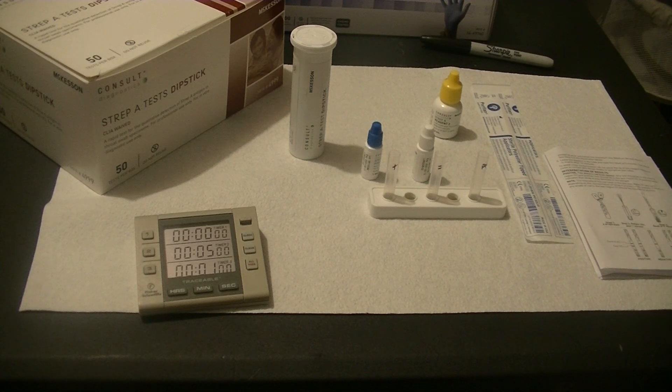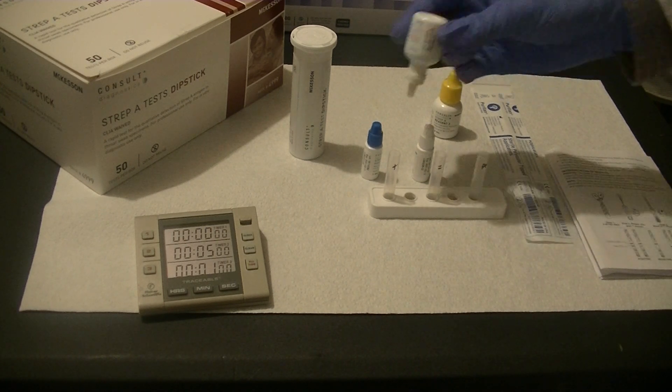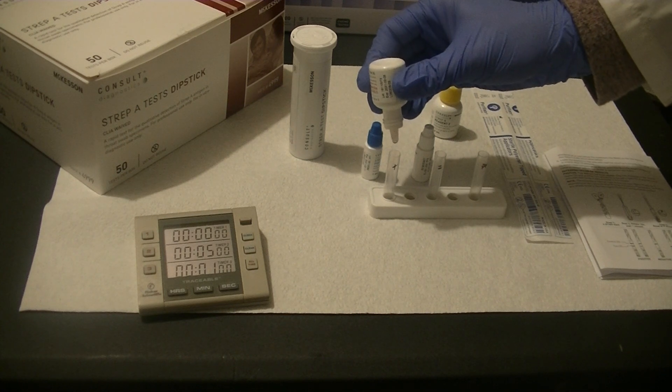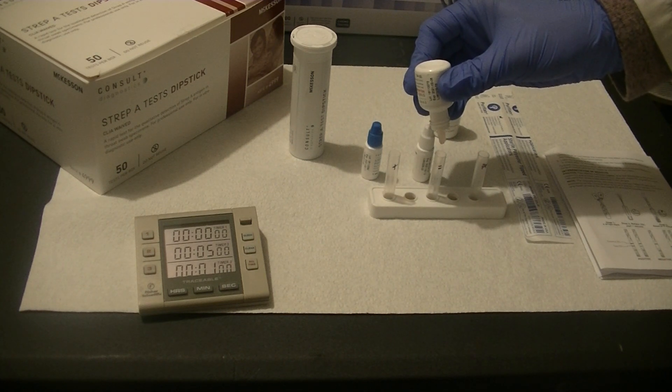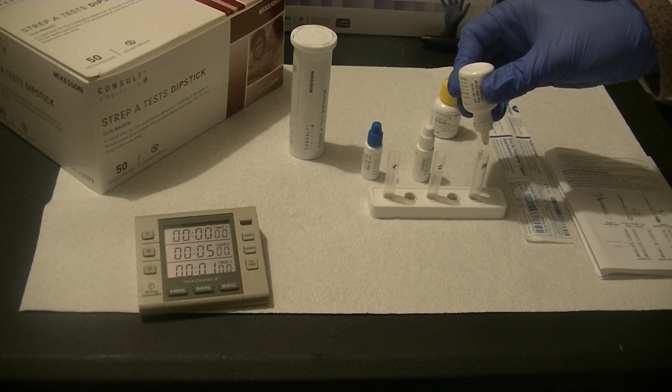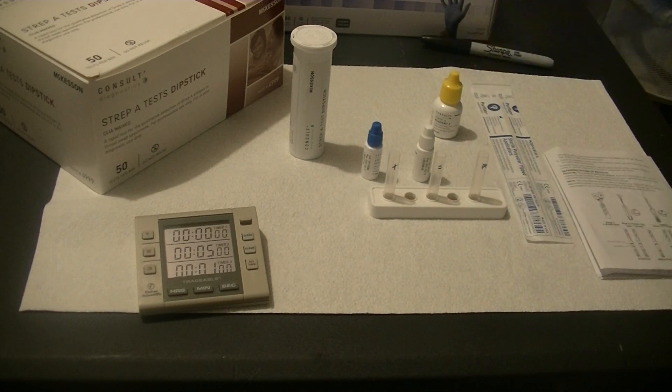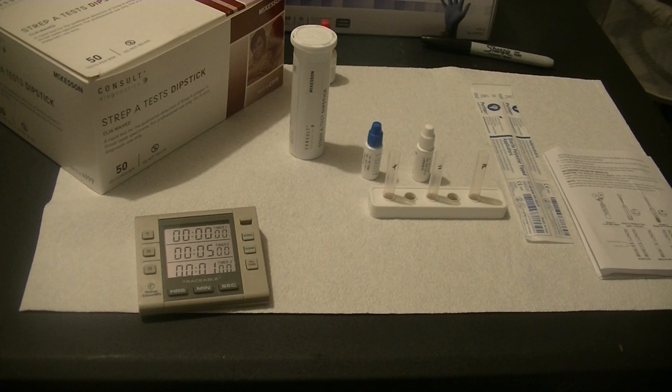So the first thing I'm going to do is prepare my extraction tubes. I've got to add four drops of well-mixed Reagent 1 to each tube. I'm going to add four drops of well-mixed Reagent 2 to each tube.